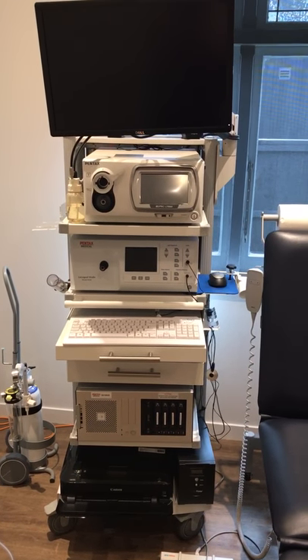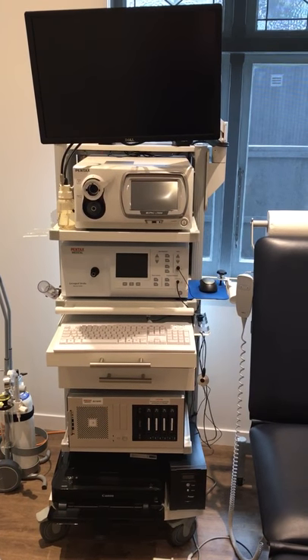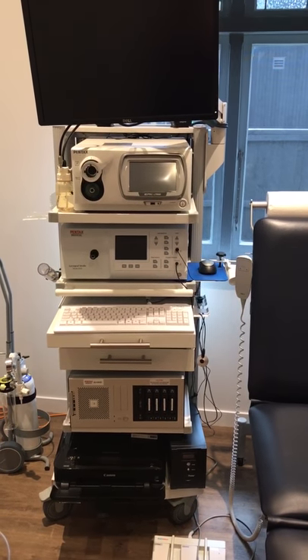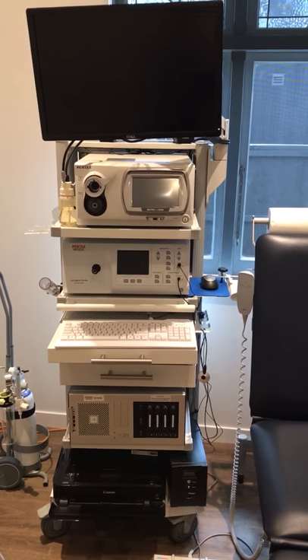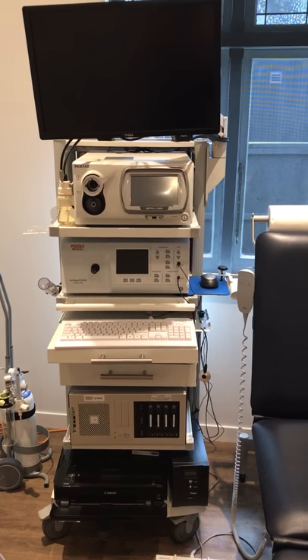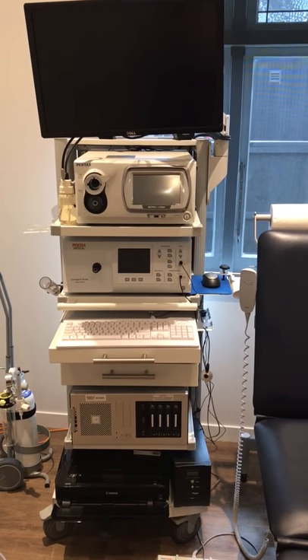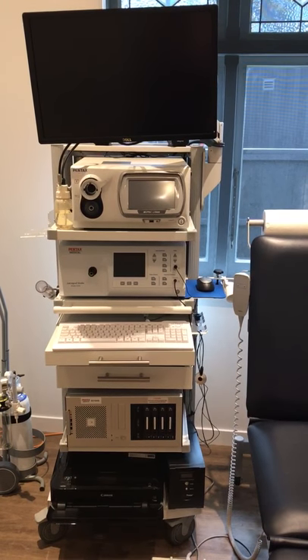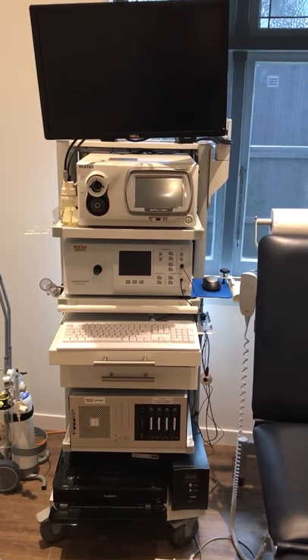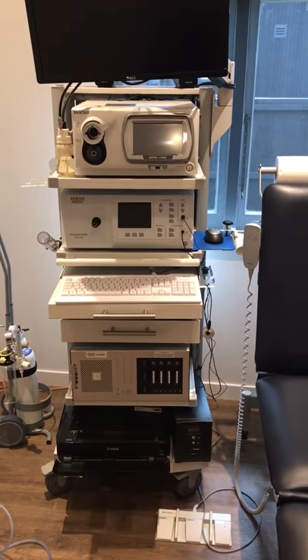Hi, Josh Nath here from JR Medical Limited, the ENT Pentax distributor here in Auckland, New Zealand. Now what we have here today is the highly acclaimed Pentax K-Pentax stroboscopy system. It's a fantastic product and I'm really looking forward to showing you a little bit more about it.